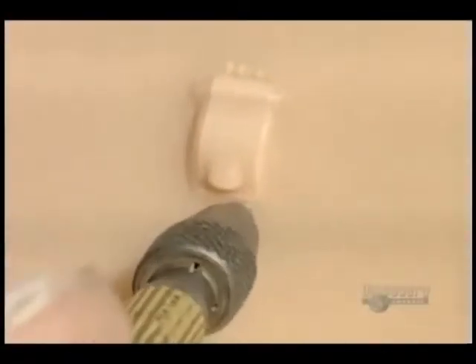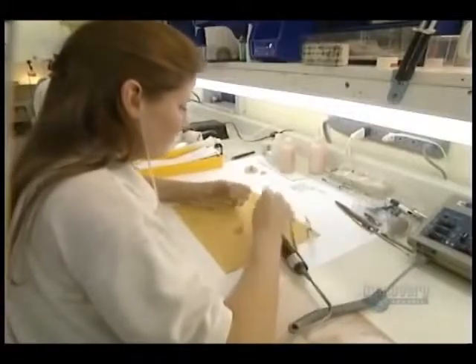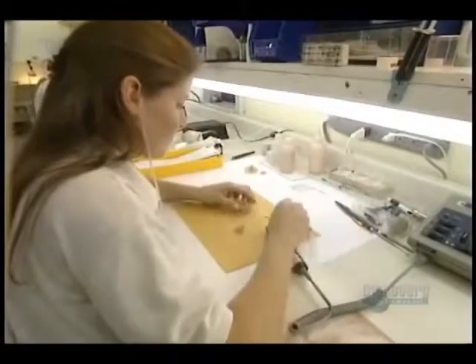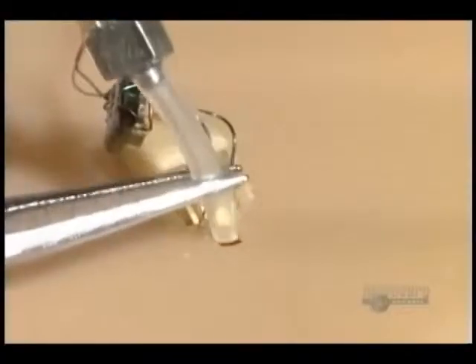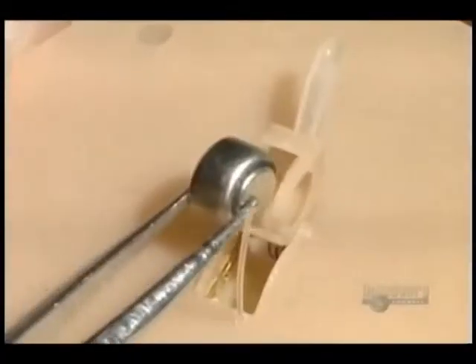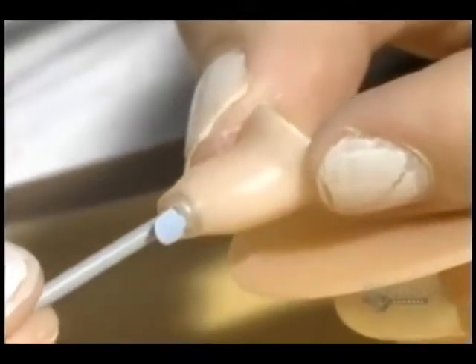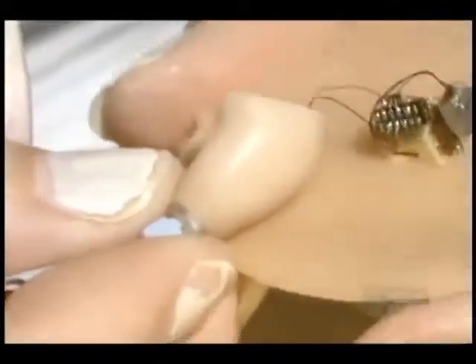This hole is used to position the fastener, a small wire which allows for removing the hearing aid from the ear. Then the battery is installed. Only a few parts such as the microphone remain to be put in place, and then everything is delicately assembled into the interior of the prosthesis.